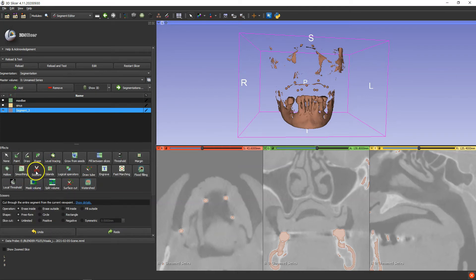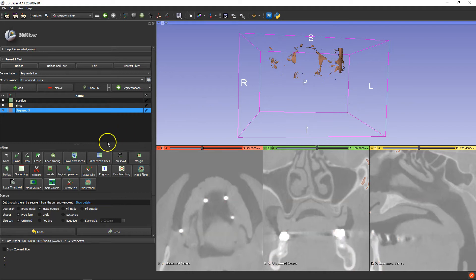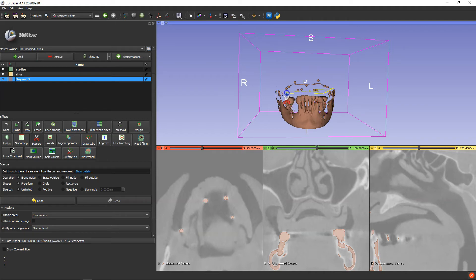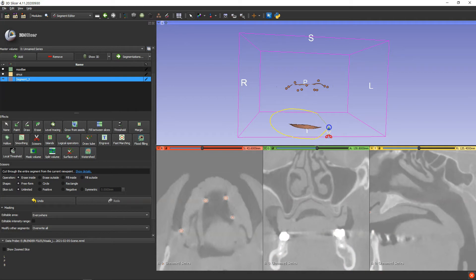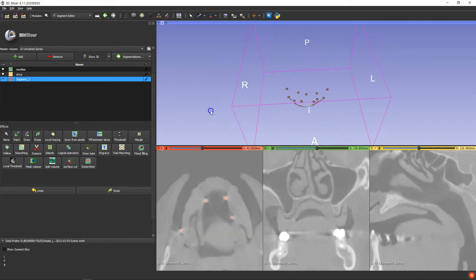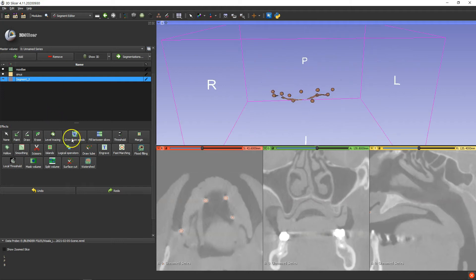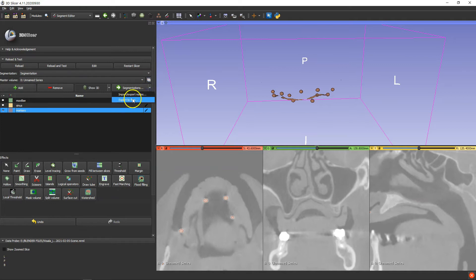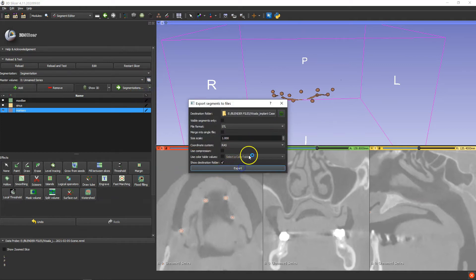So we can quickly clean this up a little bit so that we don't have that much information. Scissors. And we're going to erase the inside. It's quite a few markers — we don't even need that many markers. That should do it. So: markers, and extract. Export file. And we're going to go back to Blender.